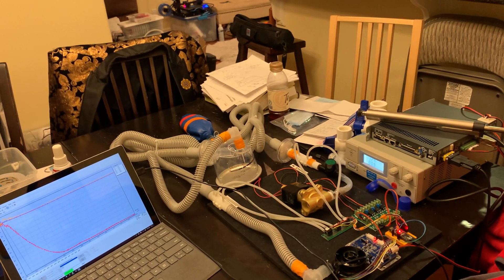Hello, this is Edwin with another update on the ventilator. I think this will be a particularly exciting update because we have been waiting for a number of parts which have since arrived.